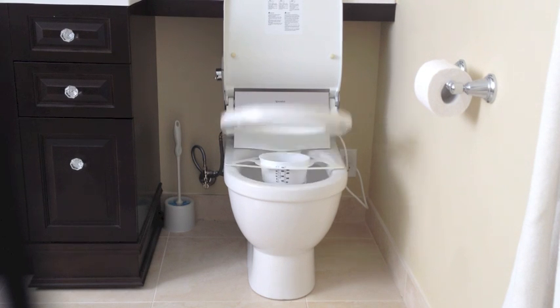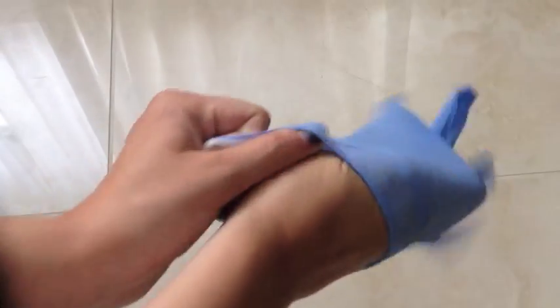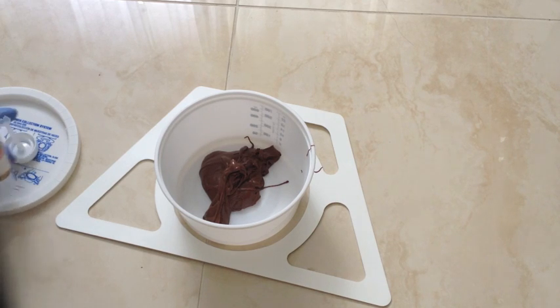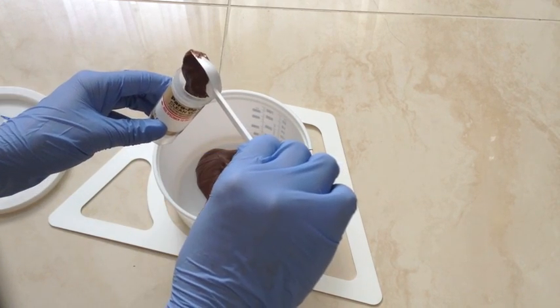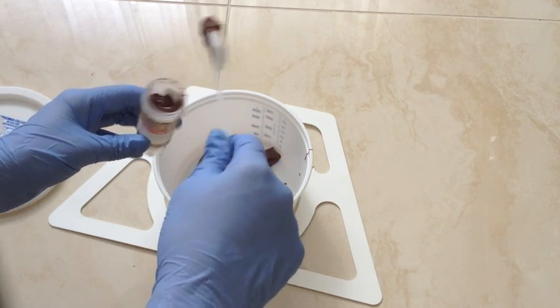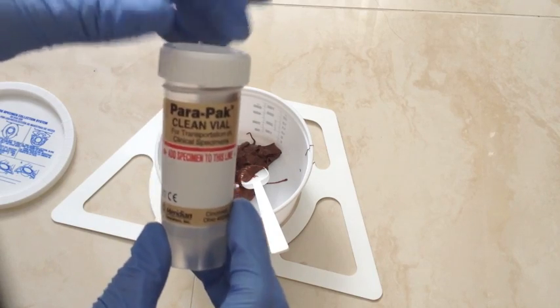After you've left something behind, lift back up the lid and take it off the toilet. For safety, put on your gloves. Take out the tube from its packaging, then take out the spoon and scoop out some poop. You can also use the spoon on top of the lid. Put your feces in the tube — now you know why you want to wear gloves. Fill it up to the amount specified on the tube, then just screw on the lid and you're done.